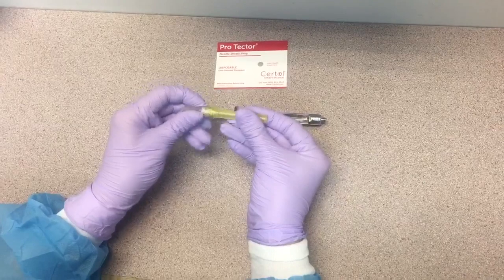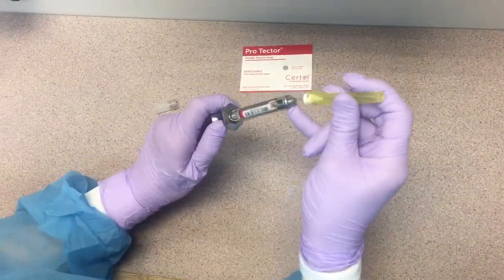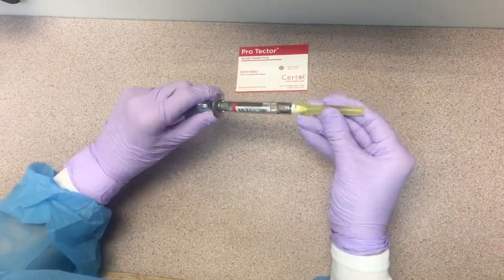To add the needle, unscrew the short end of the cap and thread it into the needle adapter, twisting it on tightly.